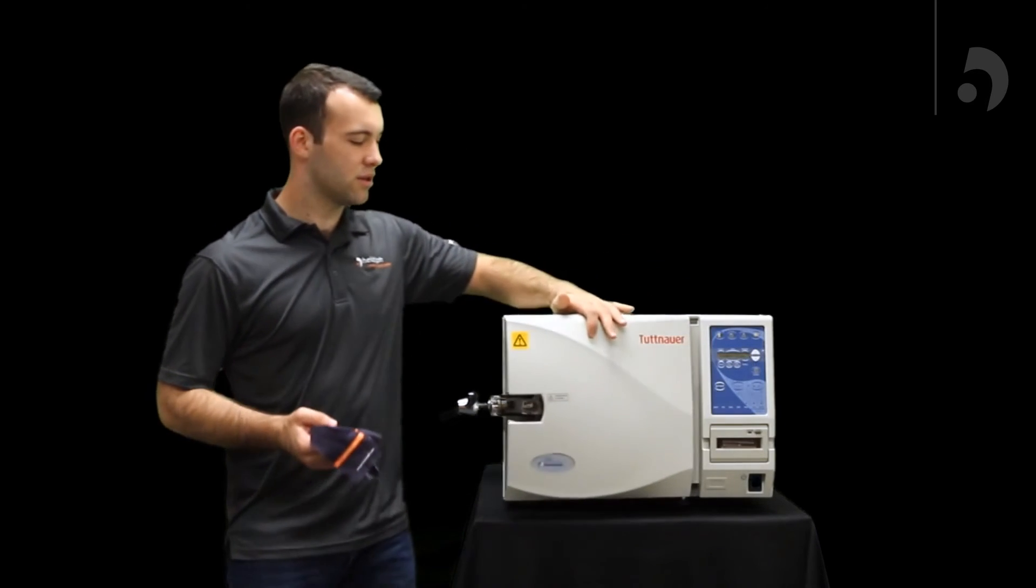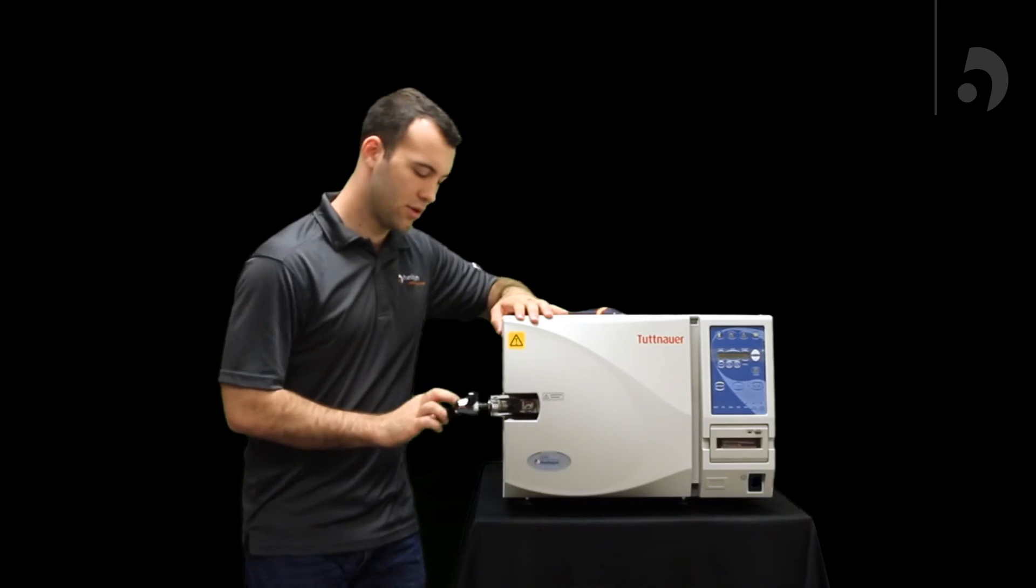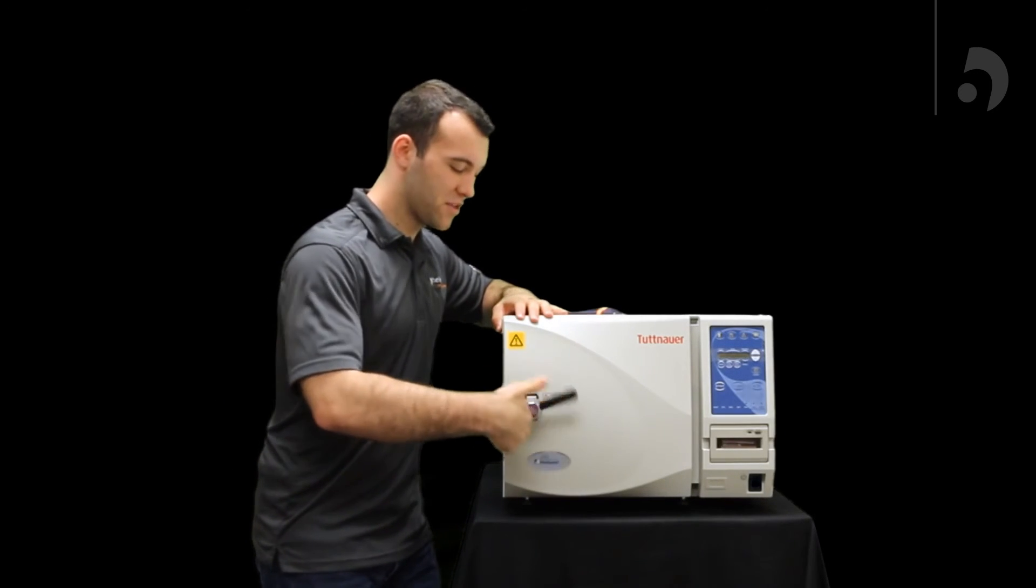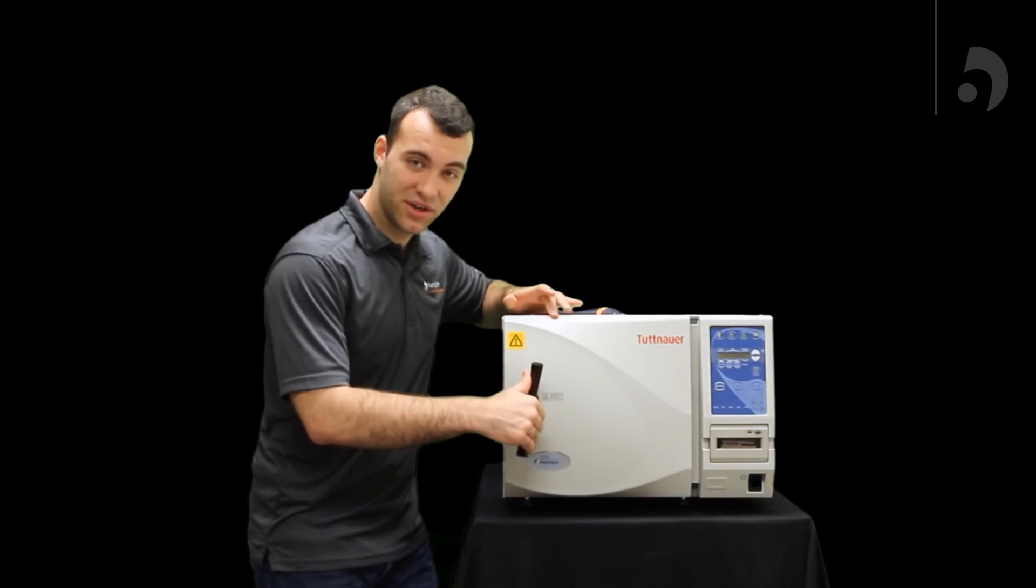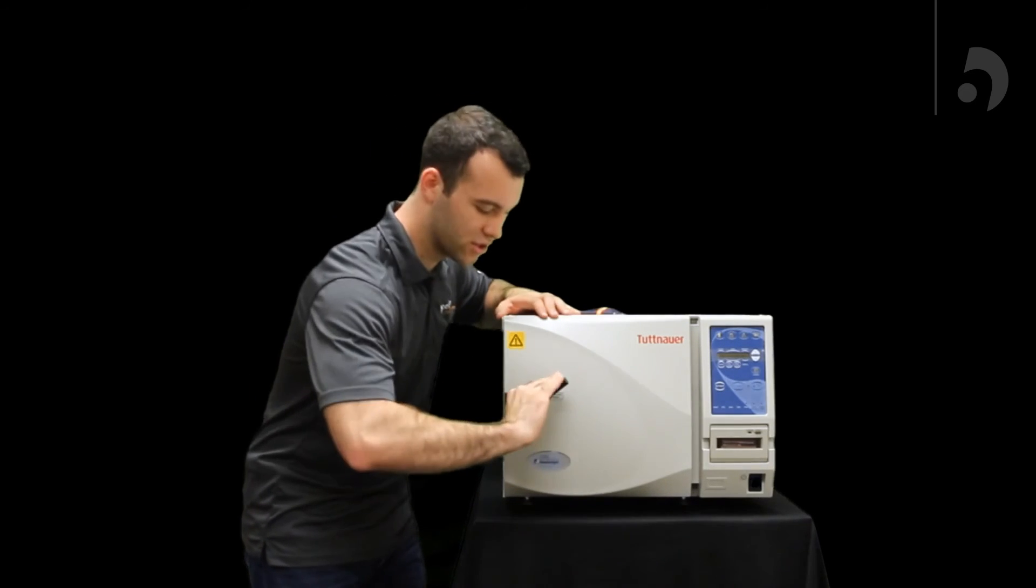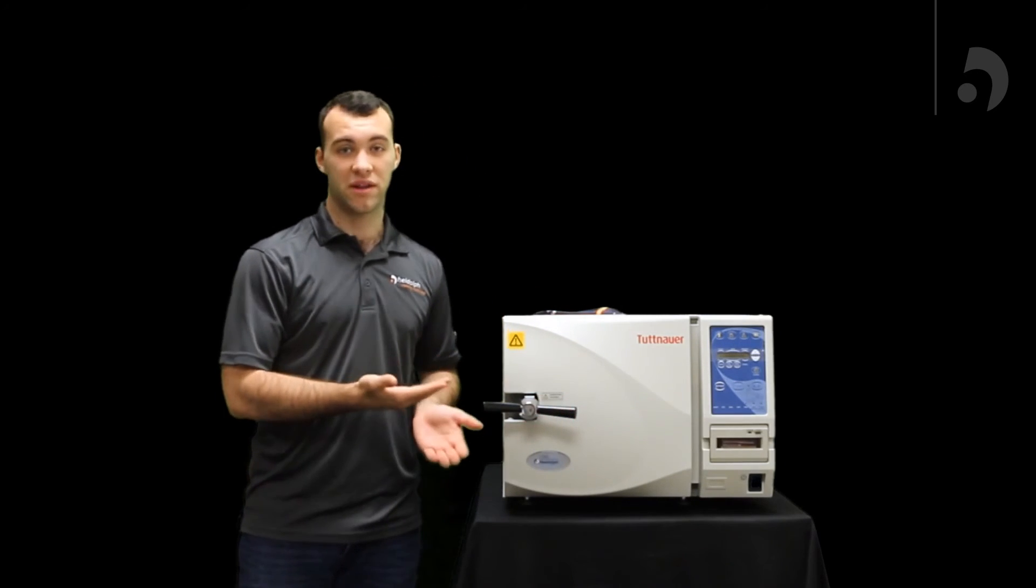Also, I want to mention that some people may have trouble with their unit leaking a little bit. It's a really simple fix. The problem is you're just not tightening it enough. So what I recommend is you tighten it until you hear the click, and then you go a full couple more turns until it gets real tight. That should stop any leaking from your unit.